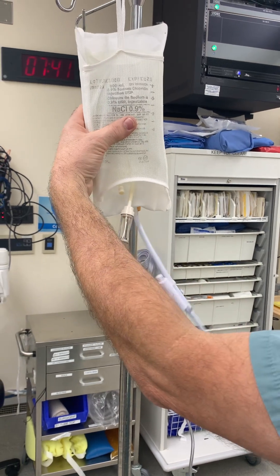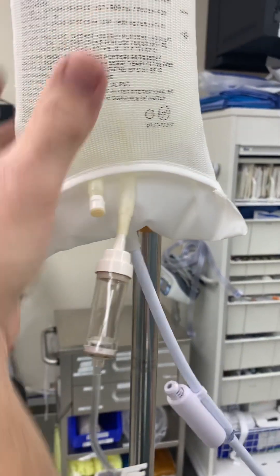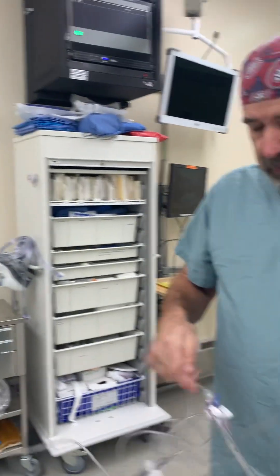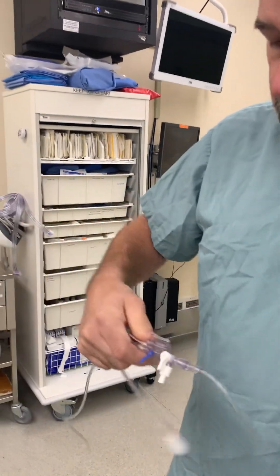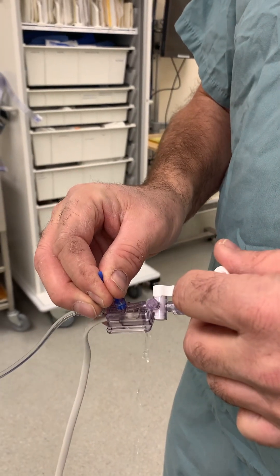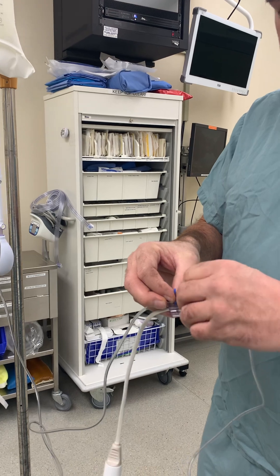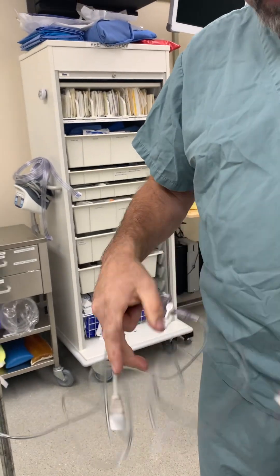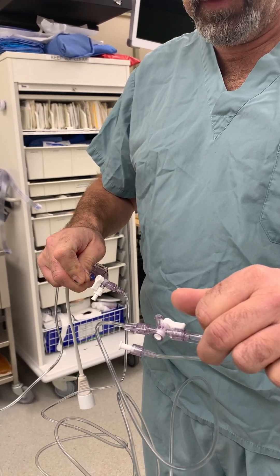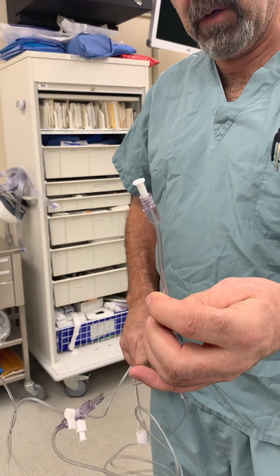What I usually do is pressurize just until I see a couple of drops come out — you got to make sure there's a little volume there, otherwise you're just going to collect air throughout your whole line. To prime this, once it's somewhat pressurized, we're going to close this valve, take this cap off, and pull this little blue tab to get all the air out — sort of a bubble on the end — then cap it, turn the stopcock back up for straight flow. Do the same with the other stopcock up here until there's a little bubble, cap that, open the valve, and flow until there's some fluid at the end.